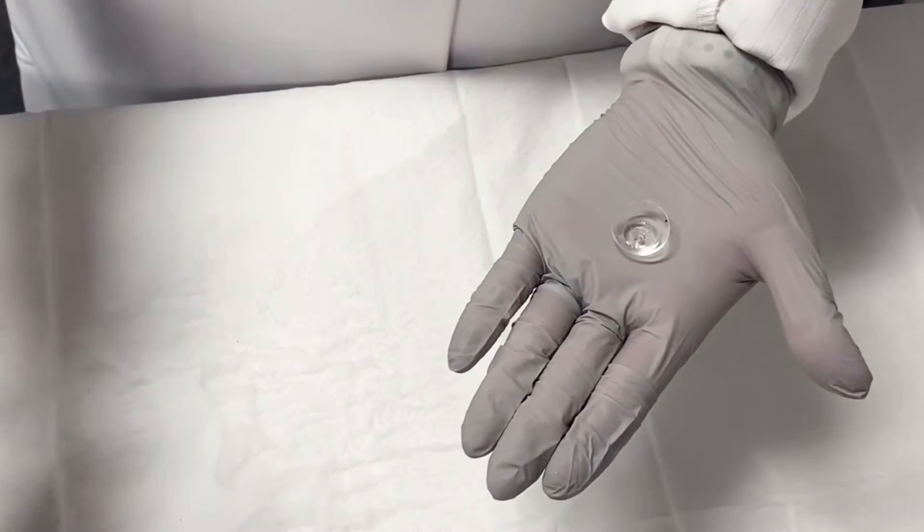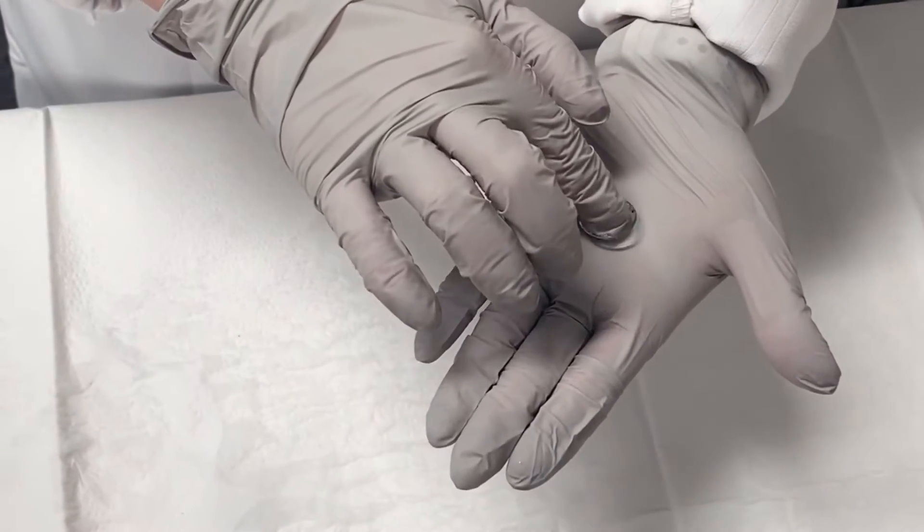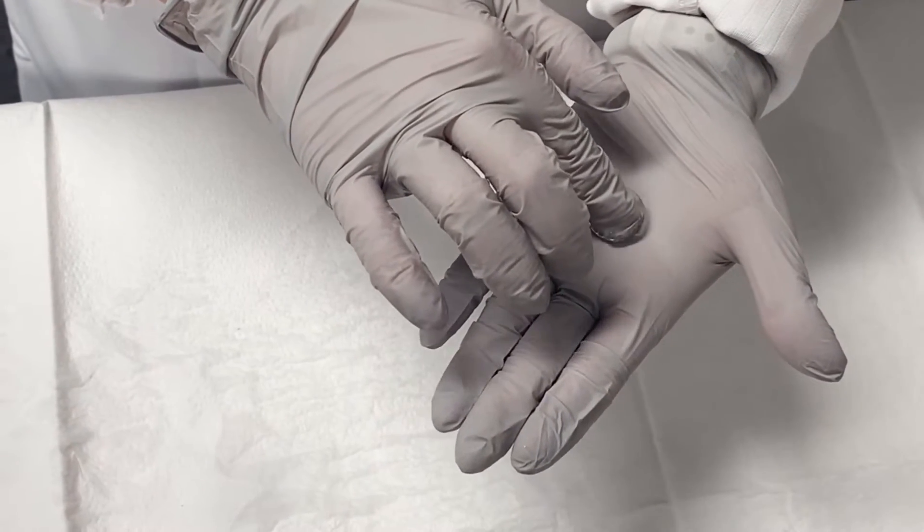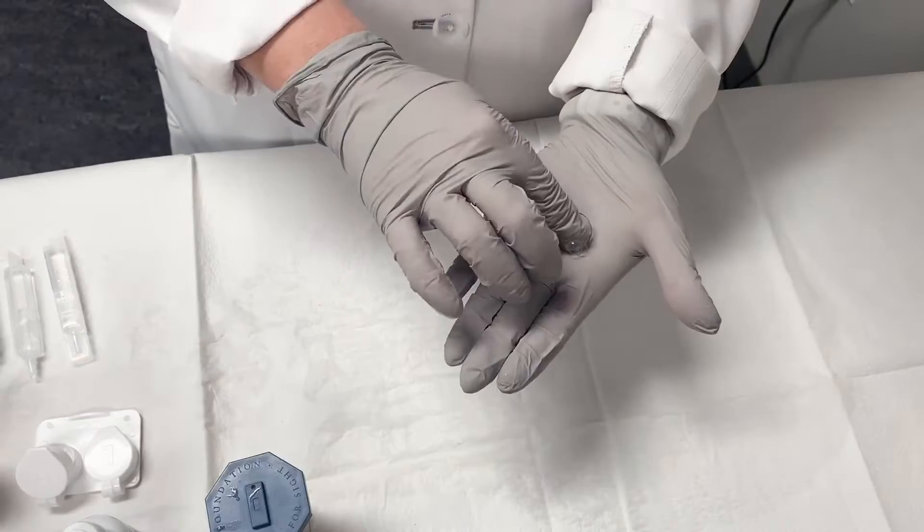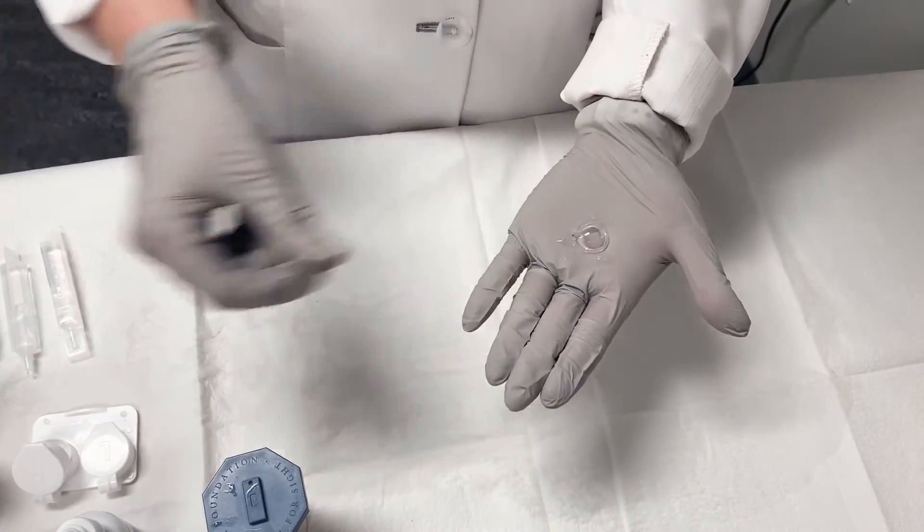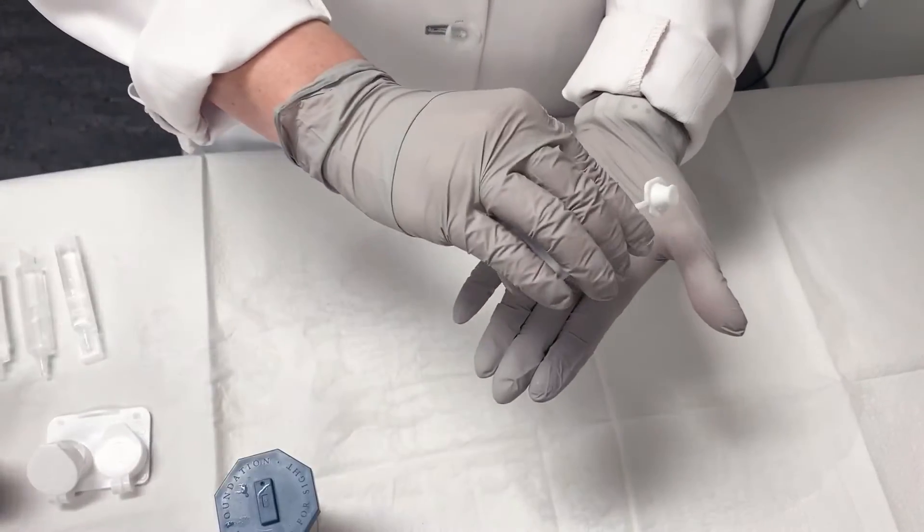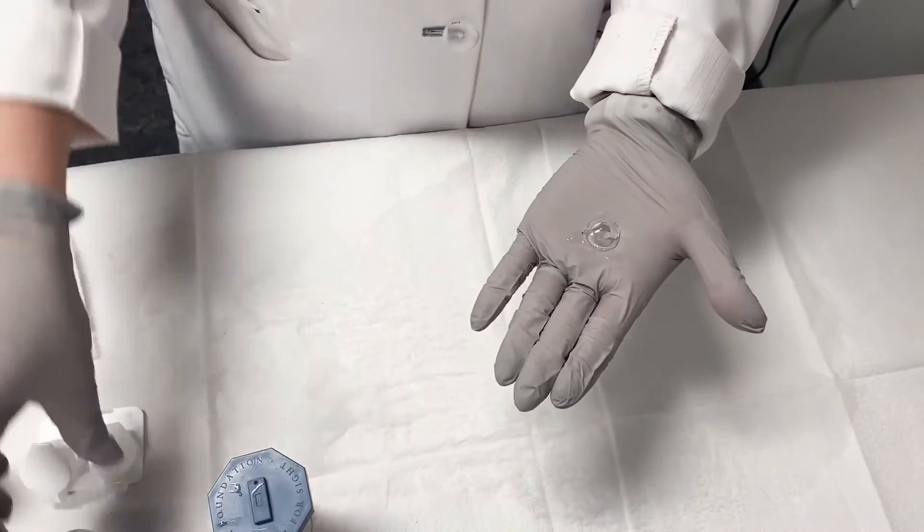Use the prescribed solution by your doctor. Place in the bowl of the lens and rub gently for 15 seconds. You're then going to turn the lens over, place another drop, and rub the device for 15 seconds.